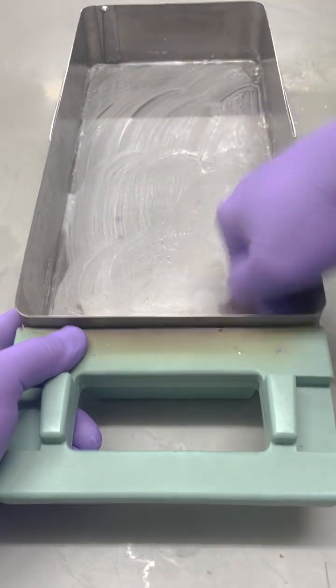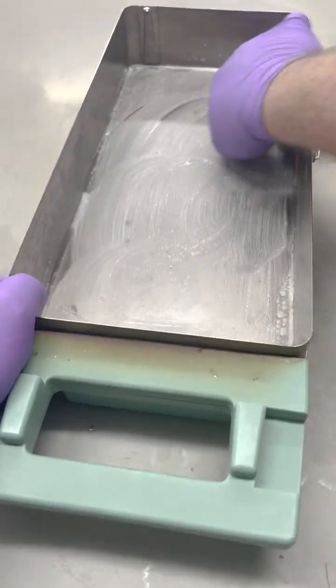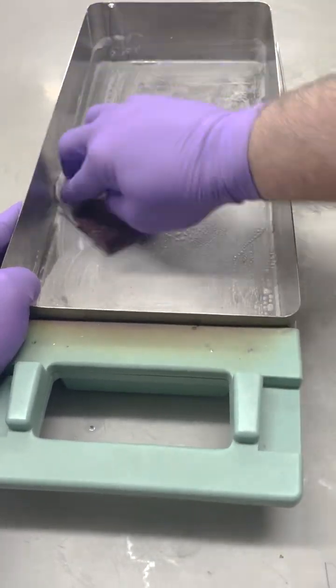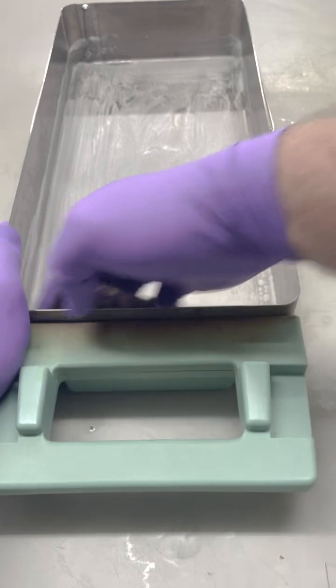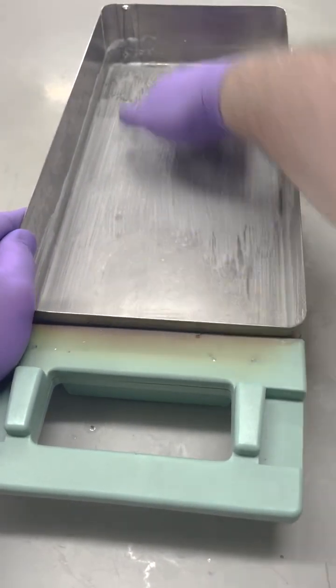We're going to agitate all that around in there, get the corners, and work around the edges. Now the center, I usually go with the green pad.